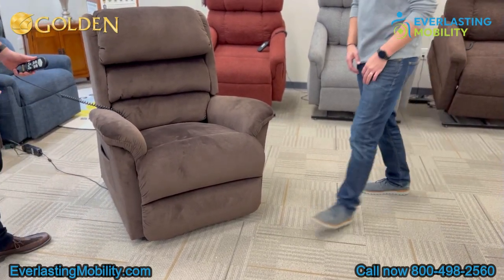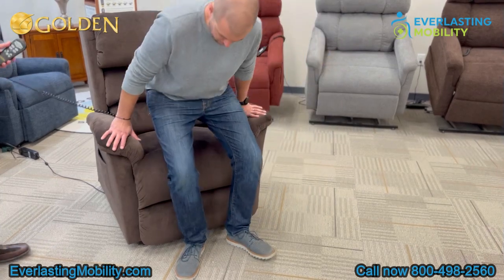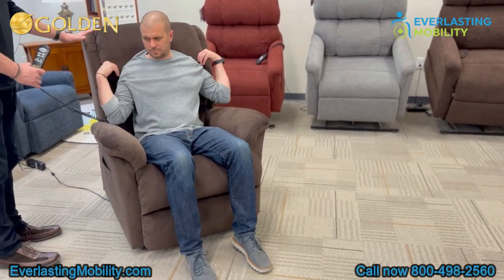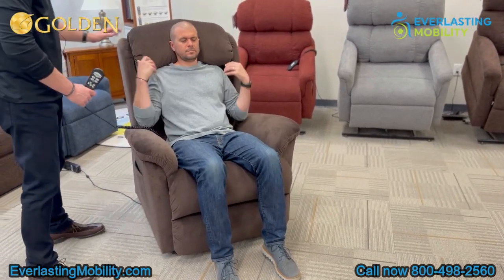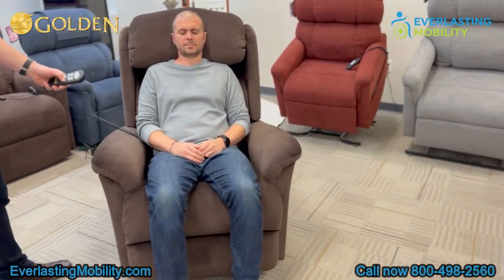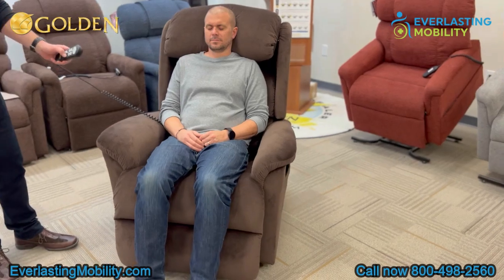If you'd like to have a seat — this is our large size, so it's going to fit people around five foot eight to six foot one. You can see he's got plenty of head support. He can adjust his top head pillow around his head to support his head, neck, and shoulders, and he can sink right into that chair with comfort — long-lasting comfort for sure.